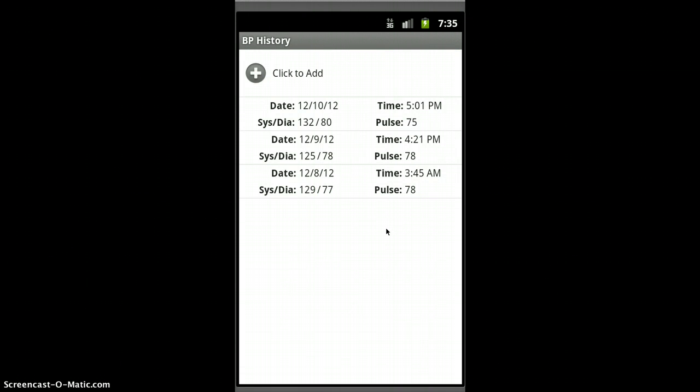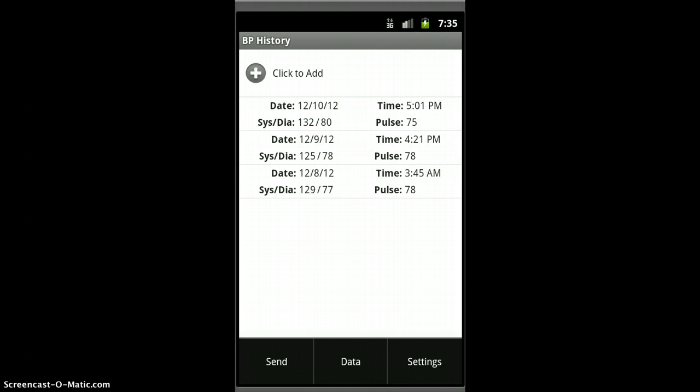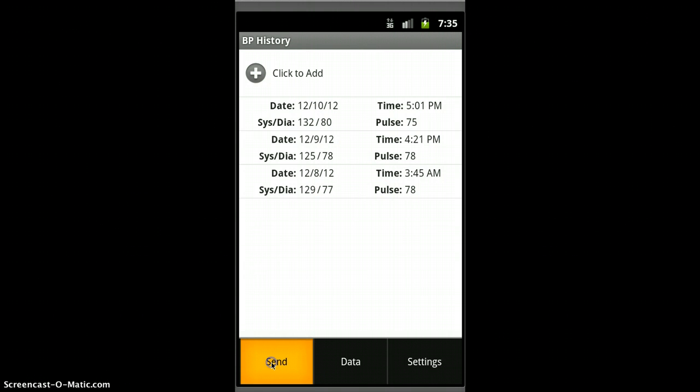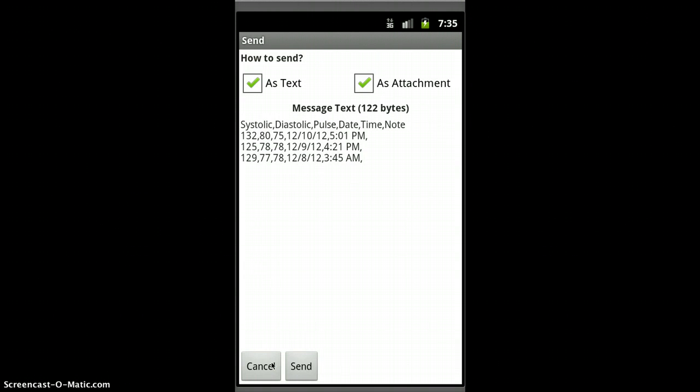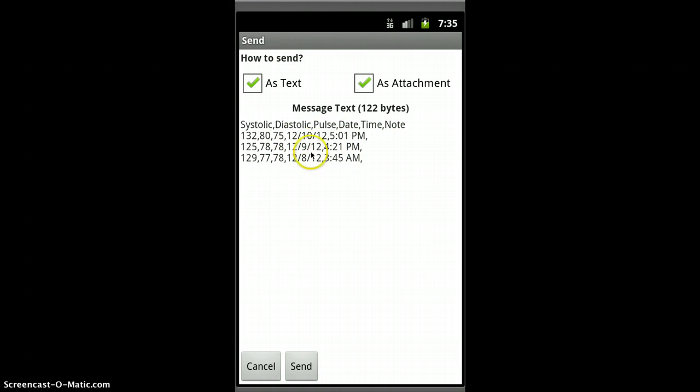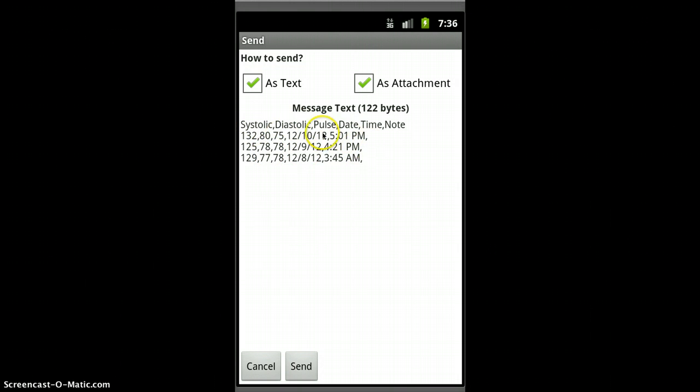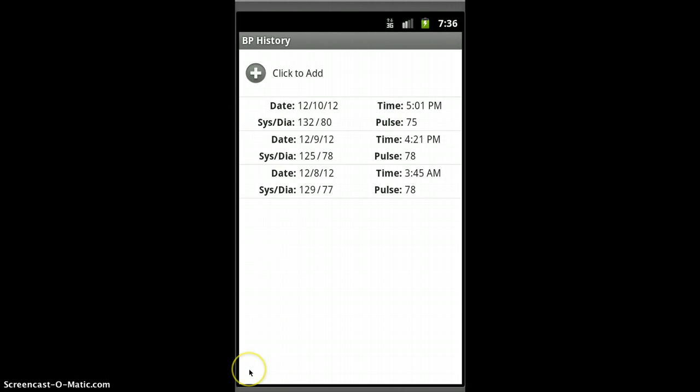So here's what's changed. We'll look at the menu, and this was always there. You could send your data, and it sends it in a format that can be read like a database, or is also pretty easy to read. The columns line up with the values here.